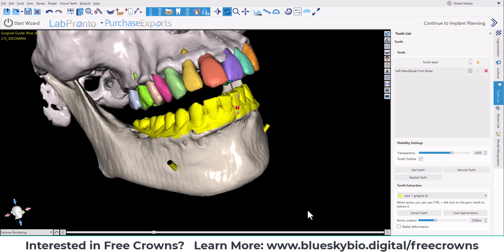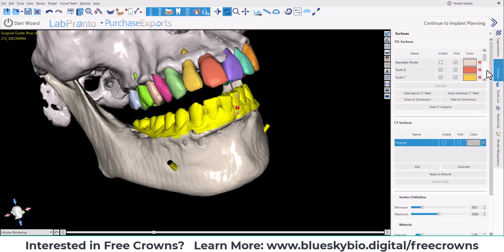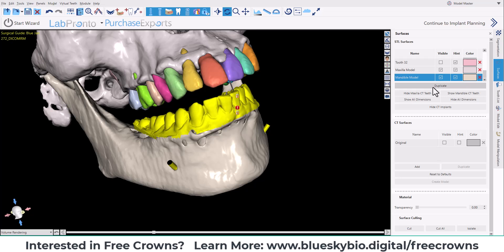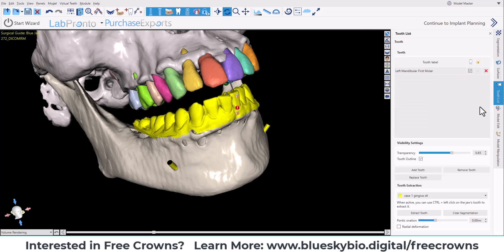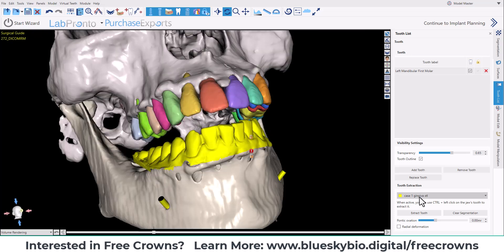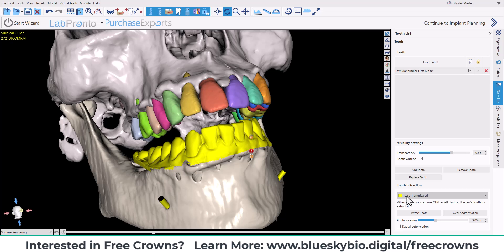If you would like to make a copy of the model before you extract the teeth, you could simply go back to the surfaces panel, find the relevant model, and click the duplicate button. Now we have a new model, which we could rename and call 'original', for example. Then we can proceed with extracting the teeth from the duplicated model. Confirm that the relevant model is selected from the drop-down list, and then click the extract tooth button.